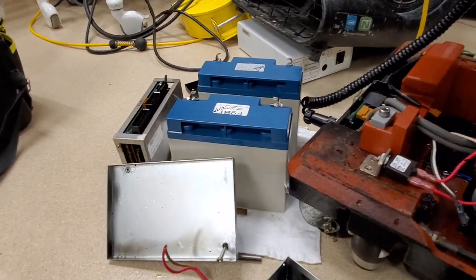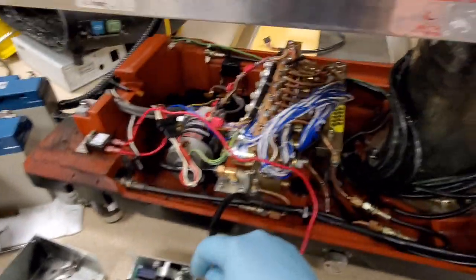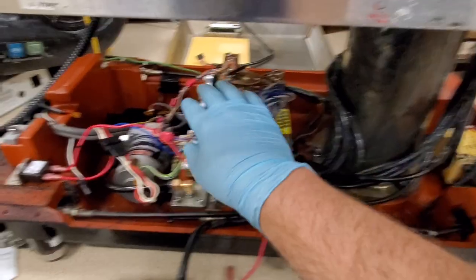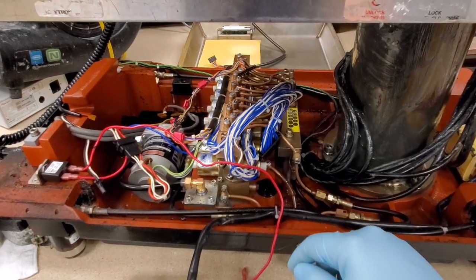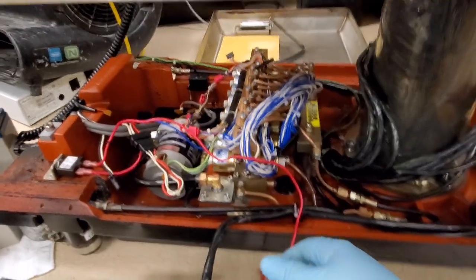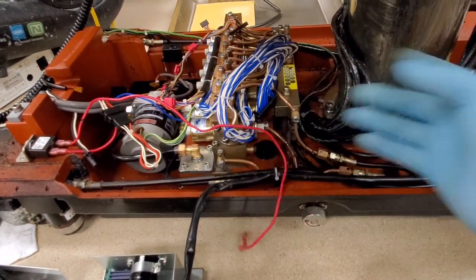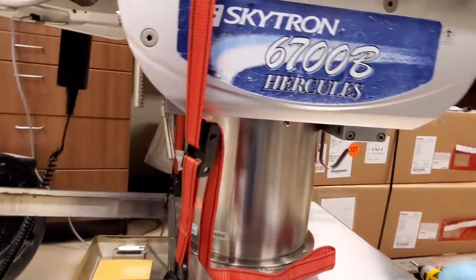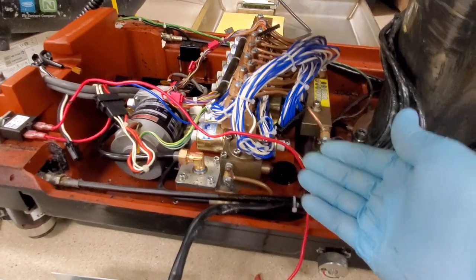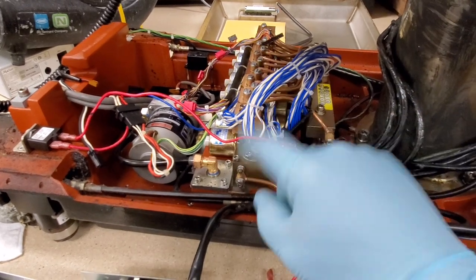So I'm going to suggest that this is a total loss. Being a 2006 table, I haven't even priced out the computer or a new rectifying box. But as soon as I started seeing melt damage on other wires, I thought: you would be here for days redoing wiring one piece at a time. And you can't just splice pieces in — you can't cut it off, crimp a new piece in, and run it. Because this belongs in a cardiovascular operating room. You don't just piecemeal wiring into a cardiovascular OR. That's not going to happen on my watch.